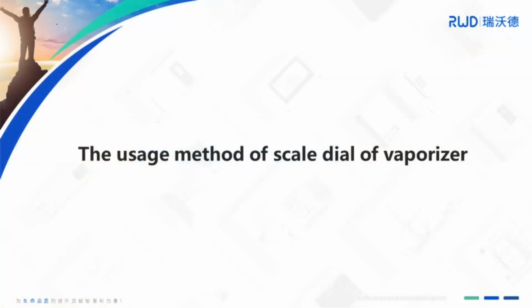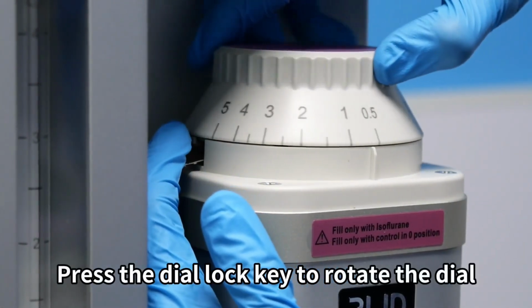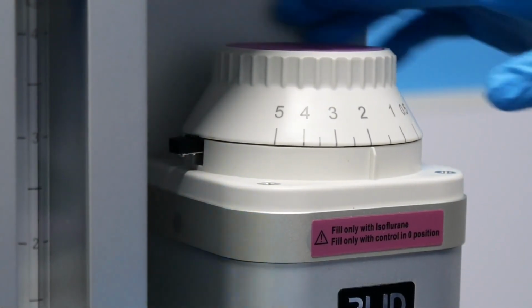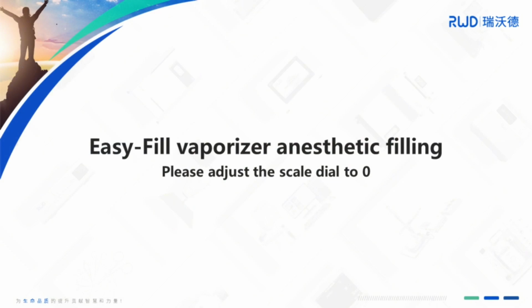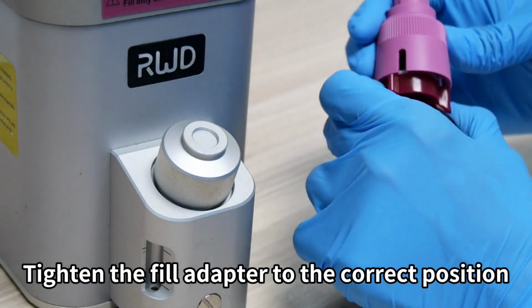The usage method of scale dial of vaporizer. Press the dial lock key to rotate the dial. Please adjust the scale dial to 0 position during the anesthetic filling of easy fill vaporizer. Tighten the fill adapter to the correct position.